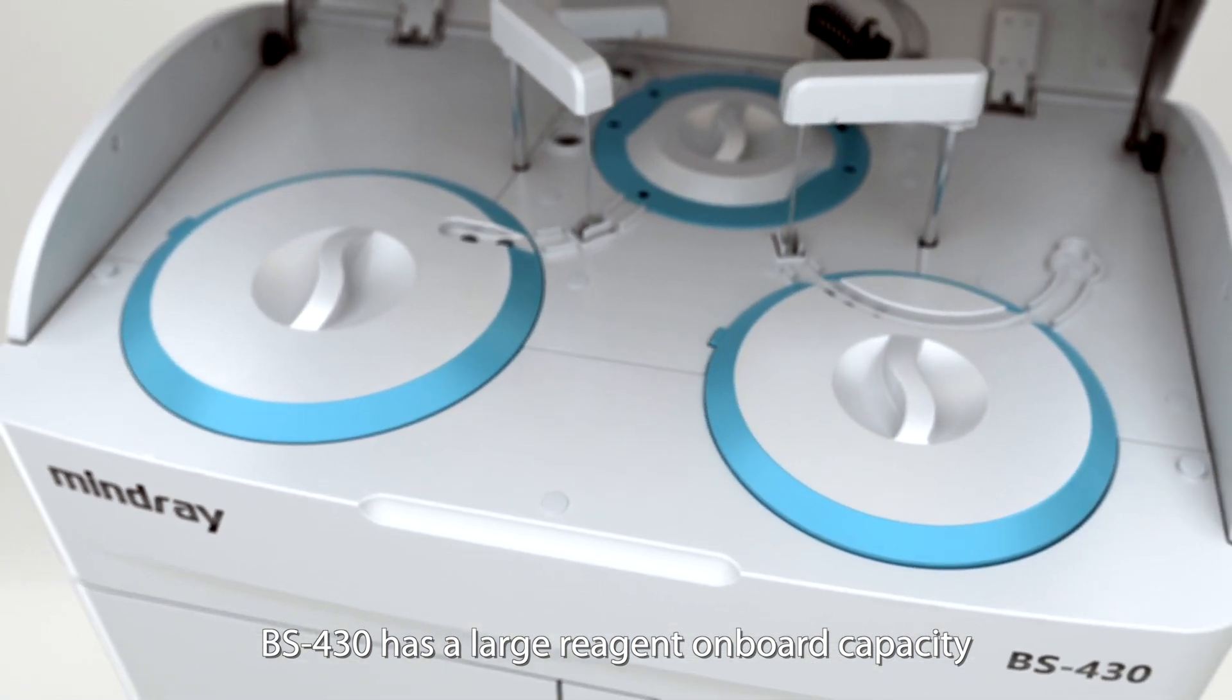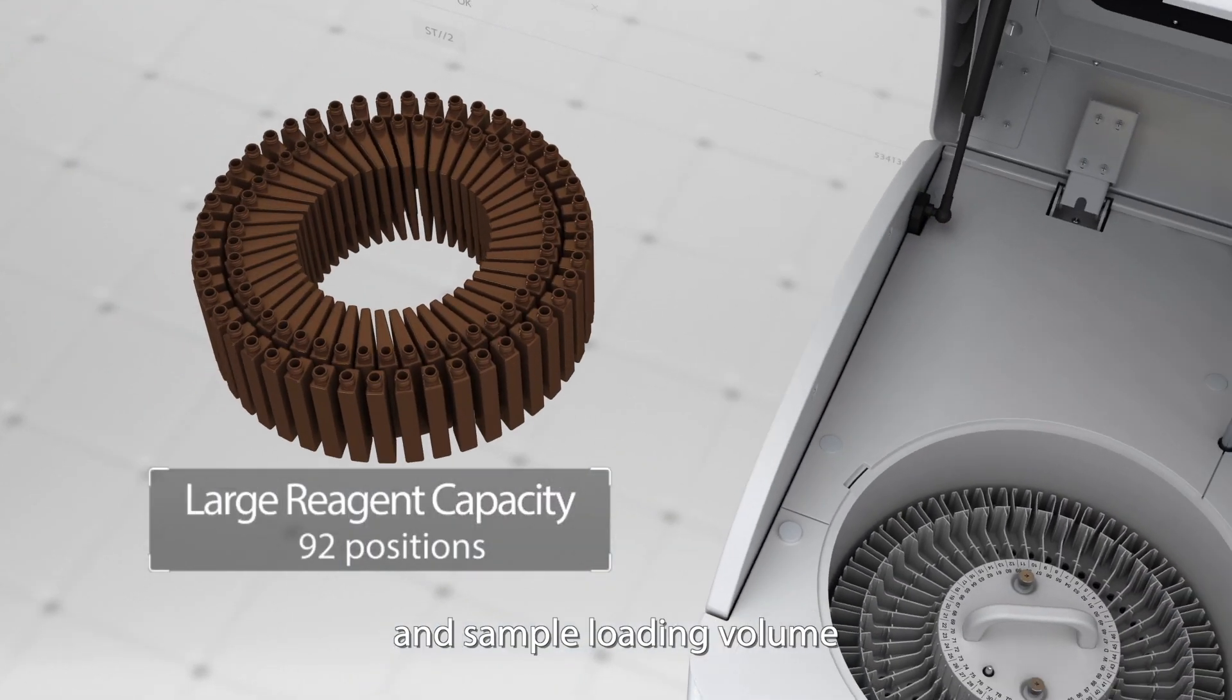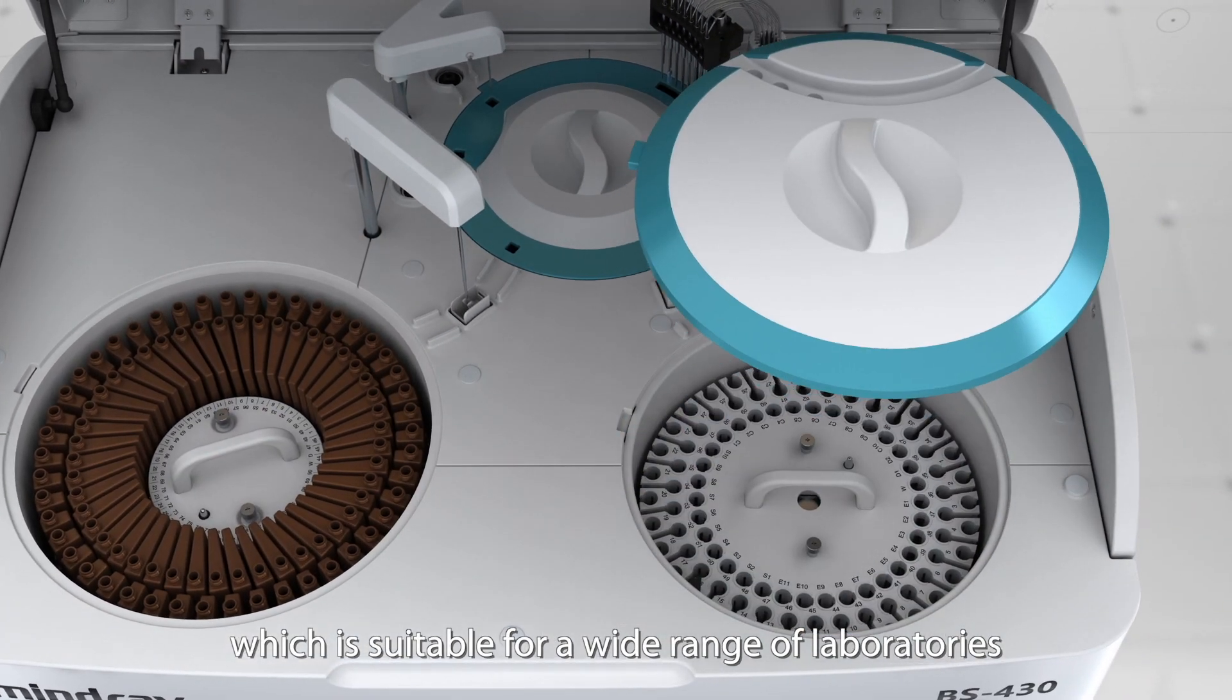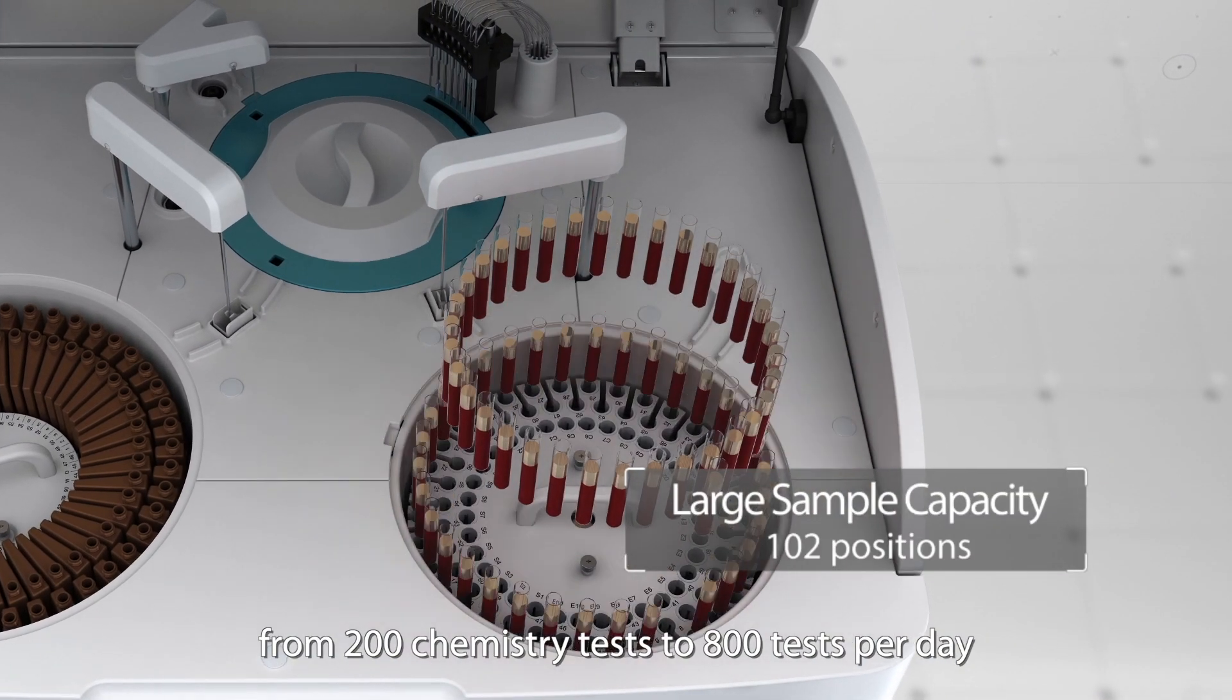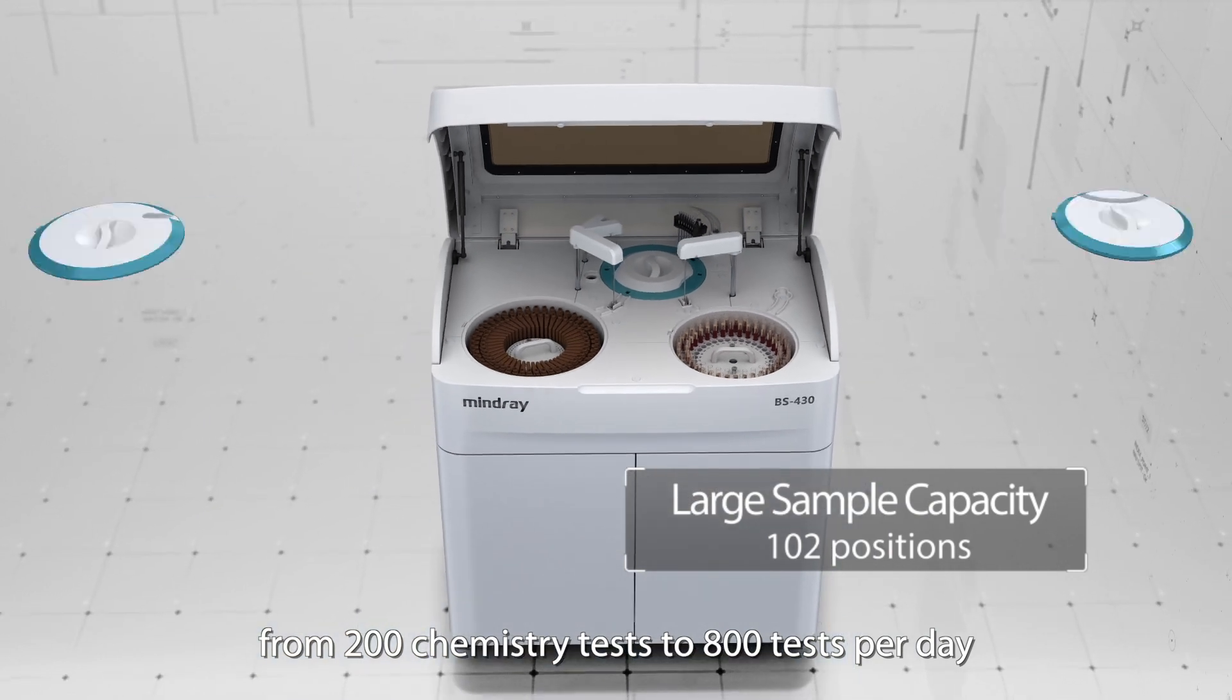BS430 has a large reagent onboard capacity and sample loading volume, which is suitable for a wide range of laboratories, from 200 chemistry tests to 800 tests per day.